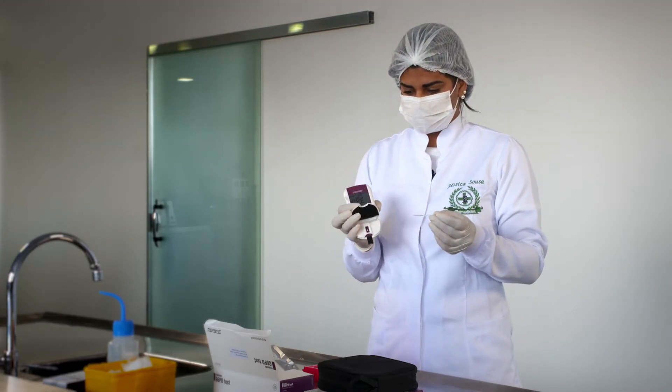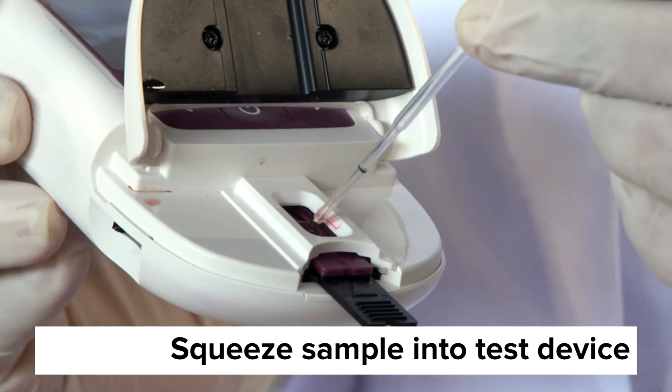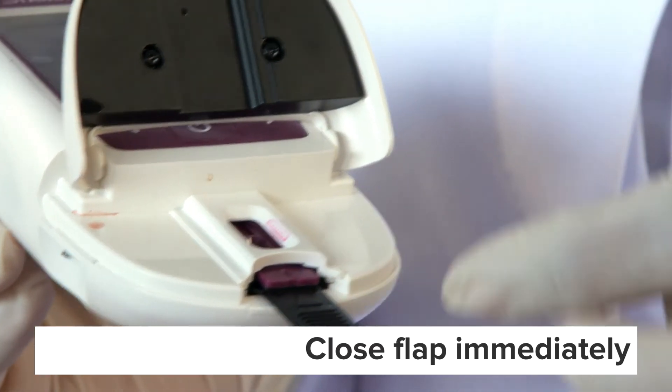Open the analyzer's flap and squeeze the bulb of the sample collector to empty the mixed specimen into the application hole of the test device. Close the flap immediately.